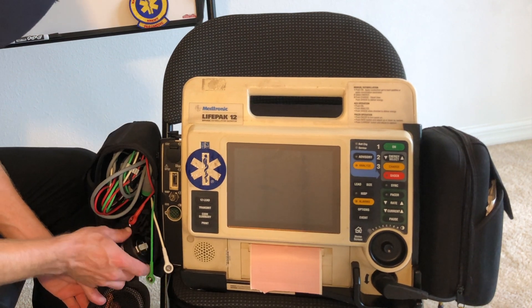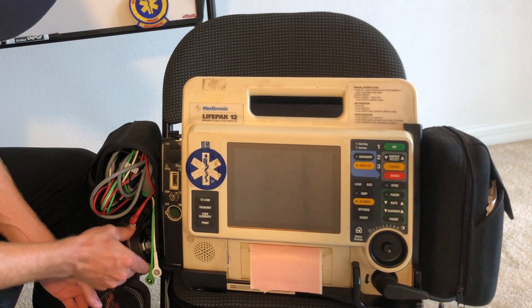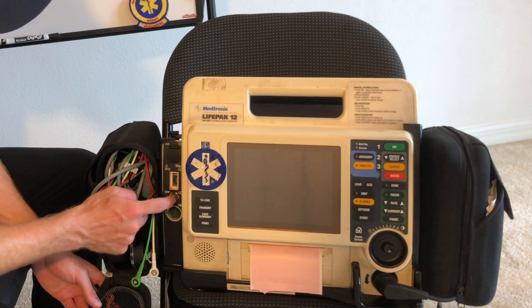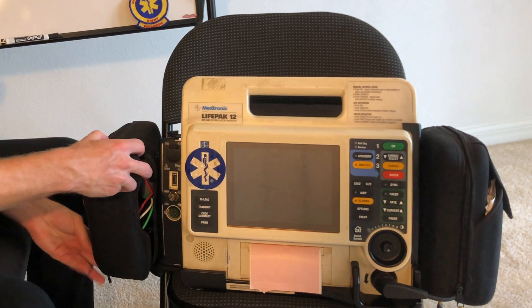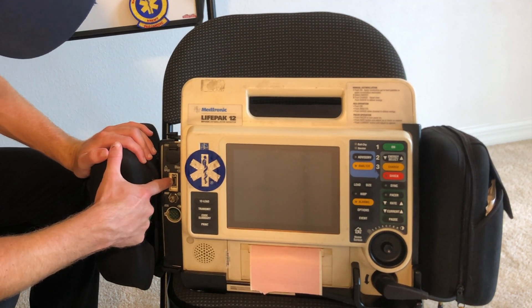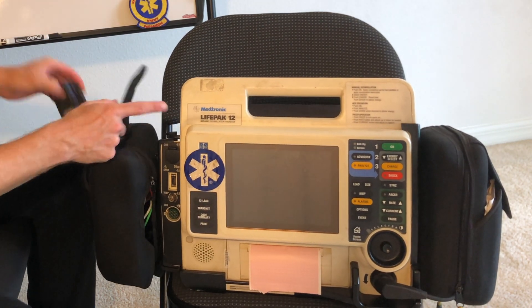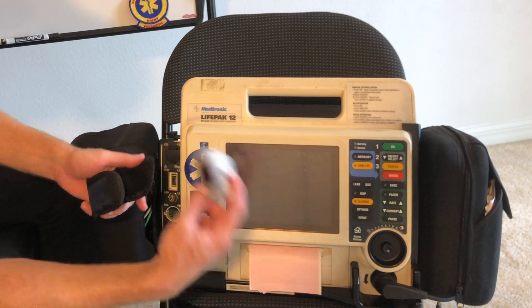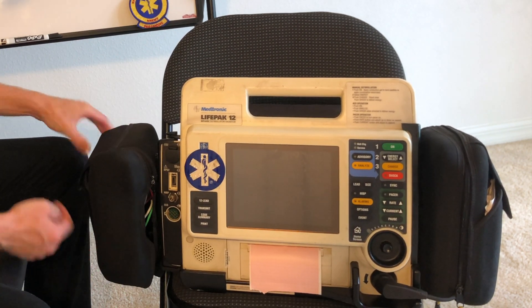Now in here would actually be your blood pressure cuff. There's a BP cuff that sticks into here — you put that right in. I have a manual in there for now since I have a BP cuff ordered and it's coming in. The next thing you're going to see is a connection here for a pulse ox, SpO2. I'll show you a waveform on here. For now I have a finger pulse ox right here that does the same job.